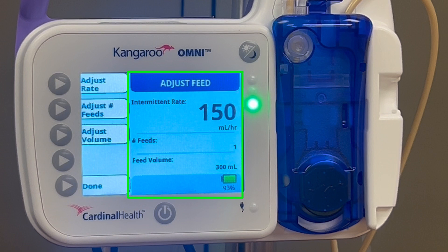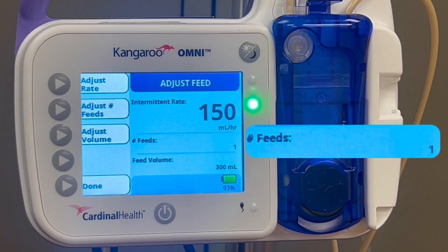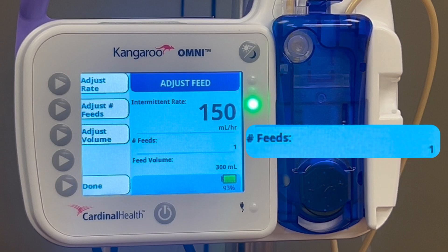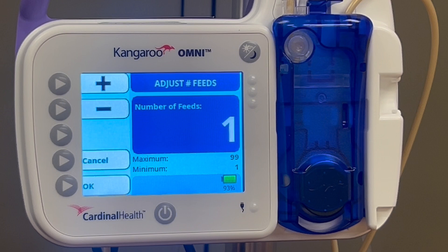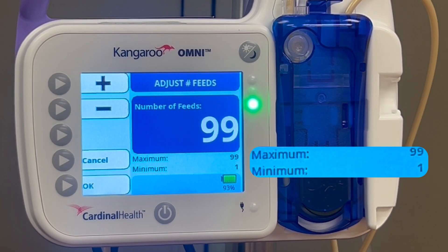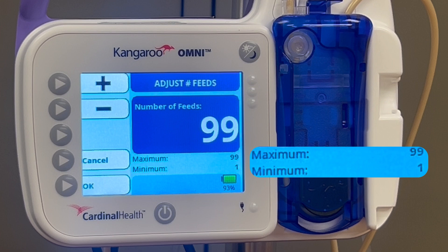If you look on the right side of the screen, you'll see that the number of feeds is currently set to 1 — that's the preset — meaning the patient will receive the bolus one time and then the program will be completed. If you want to program a schedule to continue for a longer period of time, you'll need to turn up the number of feeds. If you want to continue the regular bolus schedule indefinitely, you can program the pump to run up to 99 boluses. That should outlast any standard inpatient visit, but if it does run its course and you still need to continue boluses, just program the pump again.